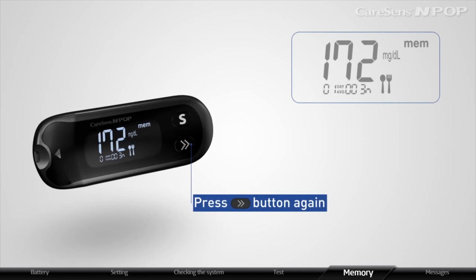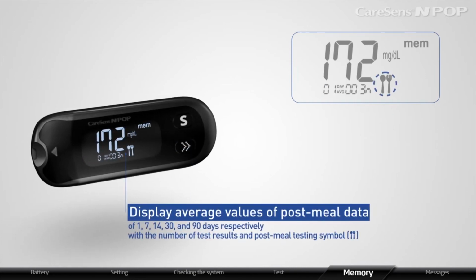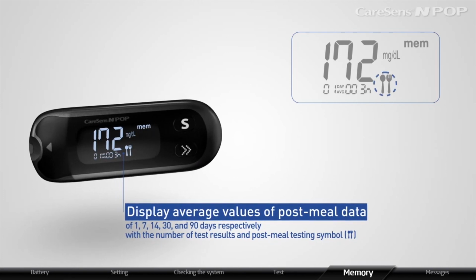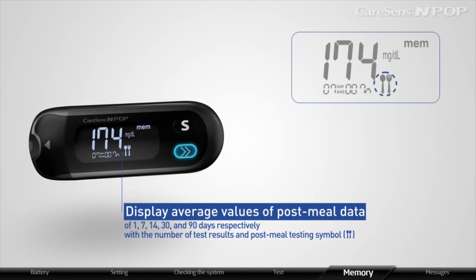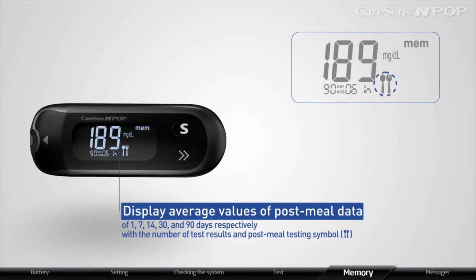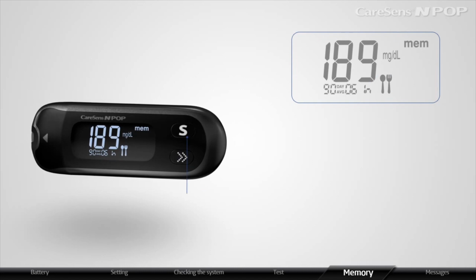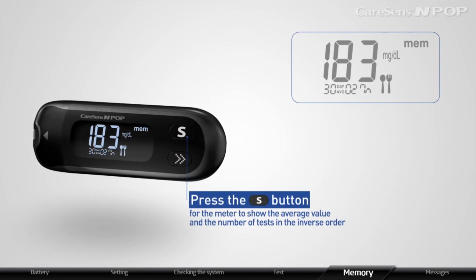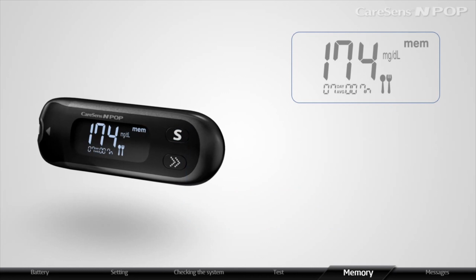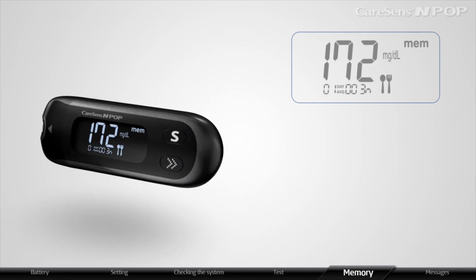If you press the arrow button again, the meter will display average values of post-meal data of 1, 7, 14, 30, and 90 days respectively, with a number of test results and post-meal testing symbol. Press the S button for the meter to show the average value and the number of tests in the inverse order. Thus, you will be able to recheck the previous results.